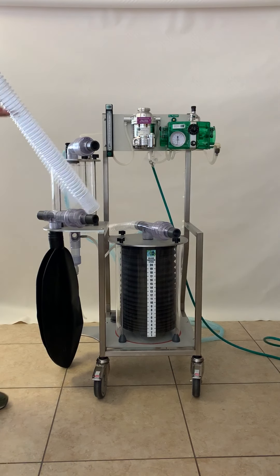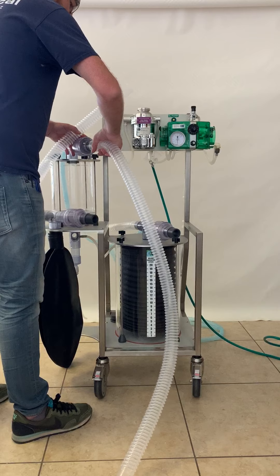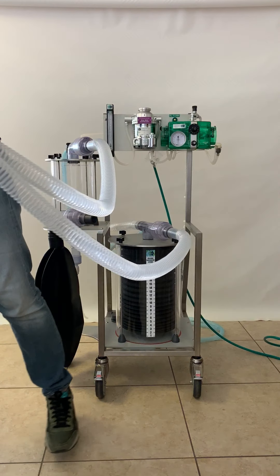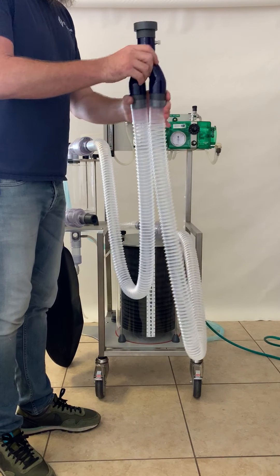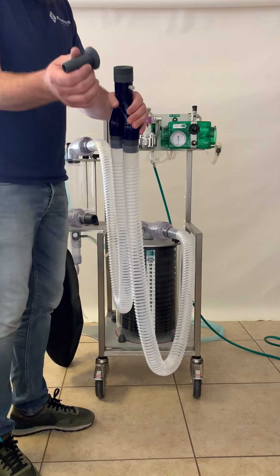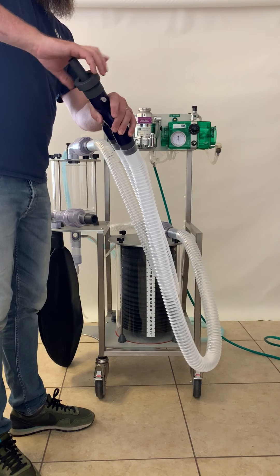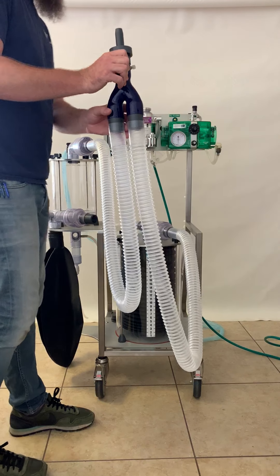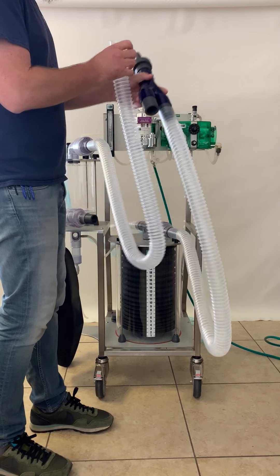To hook up the machine, we want to connect the gas to the machine in the back through the fresh gas supply hose, and we connect the breathing circuit tubes to the inspiratory and expiratory valves. Then we have the patient Y-piece. The standard Y-piece has a locking ring that unscrews. It fits on here — there's a tapered bevel that seals, the ring goes over it, and it screws down tight. This fits inside the endotracheal tube, and then you have your sampling port for CO2.